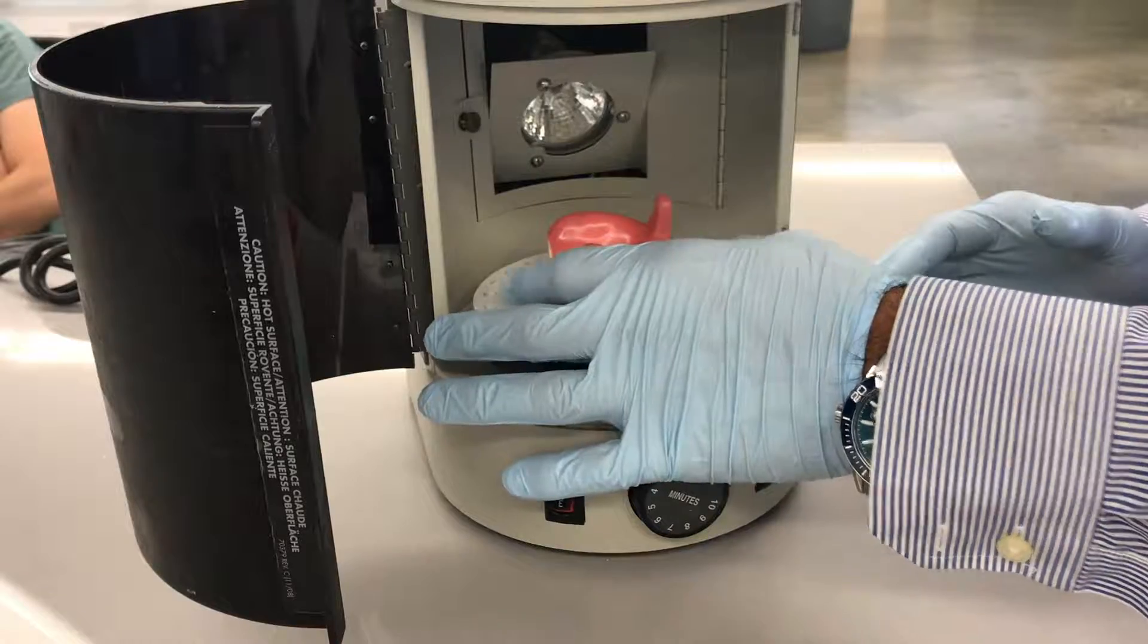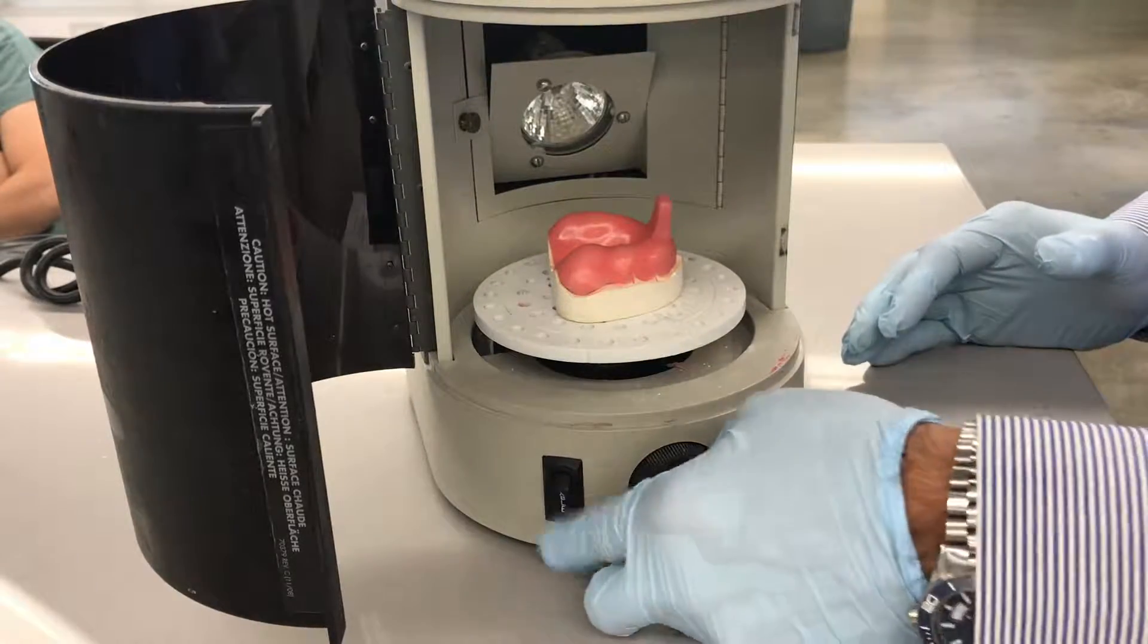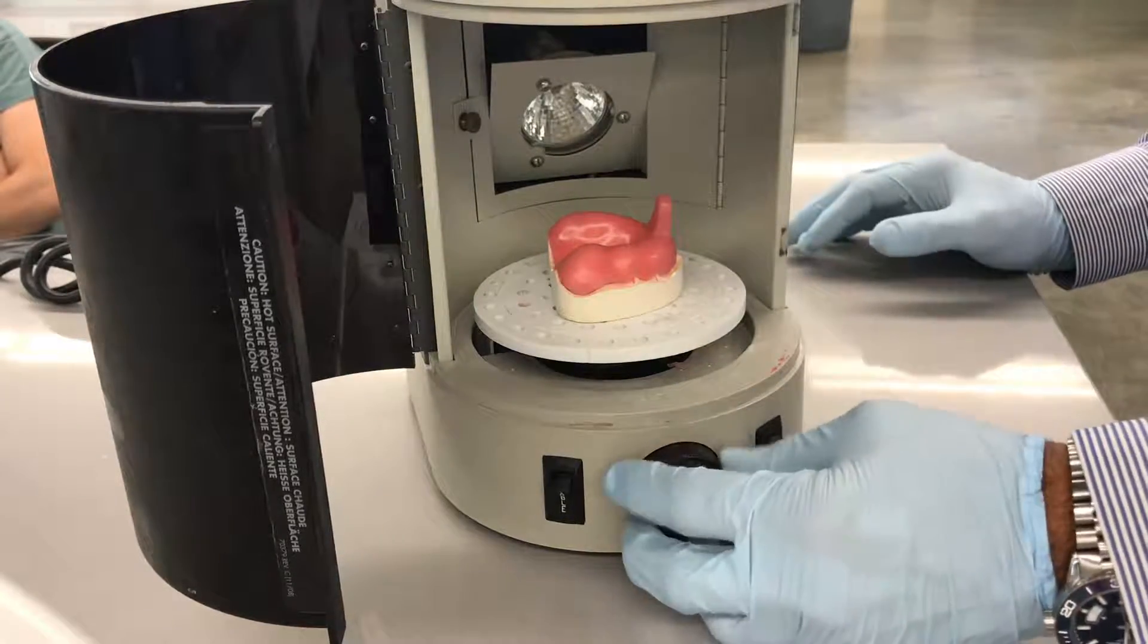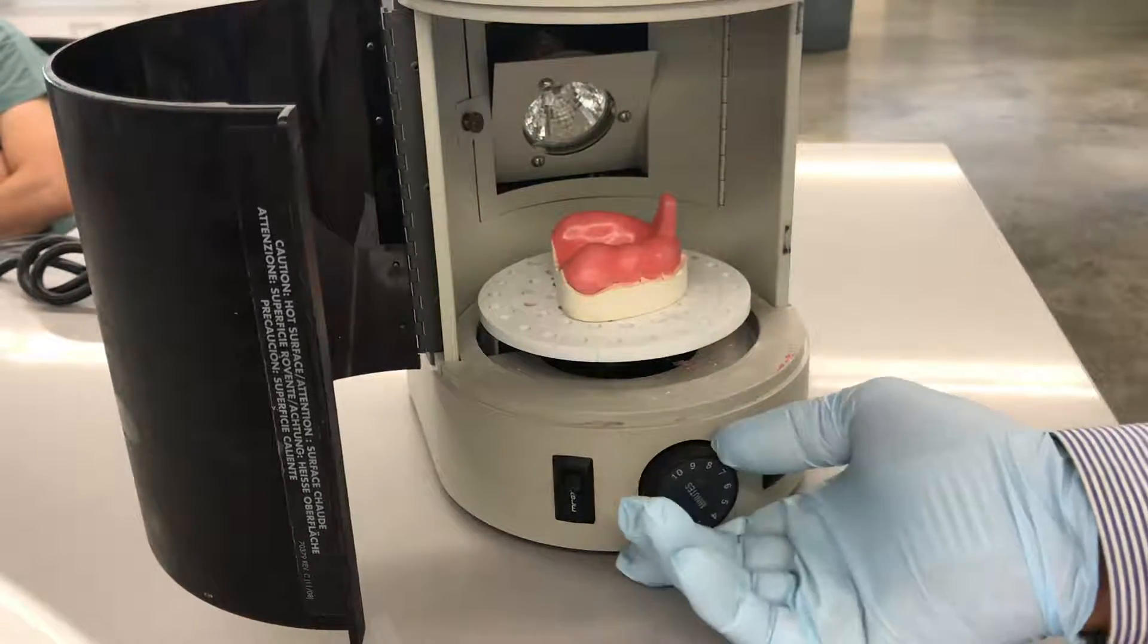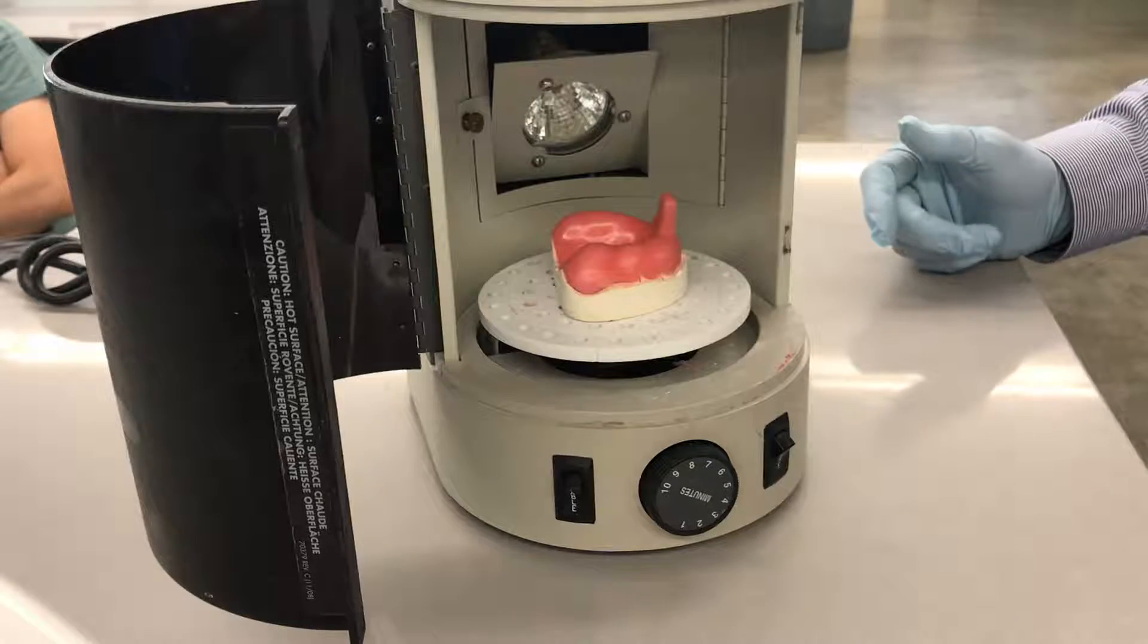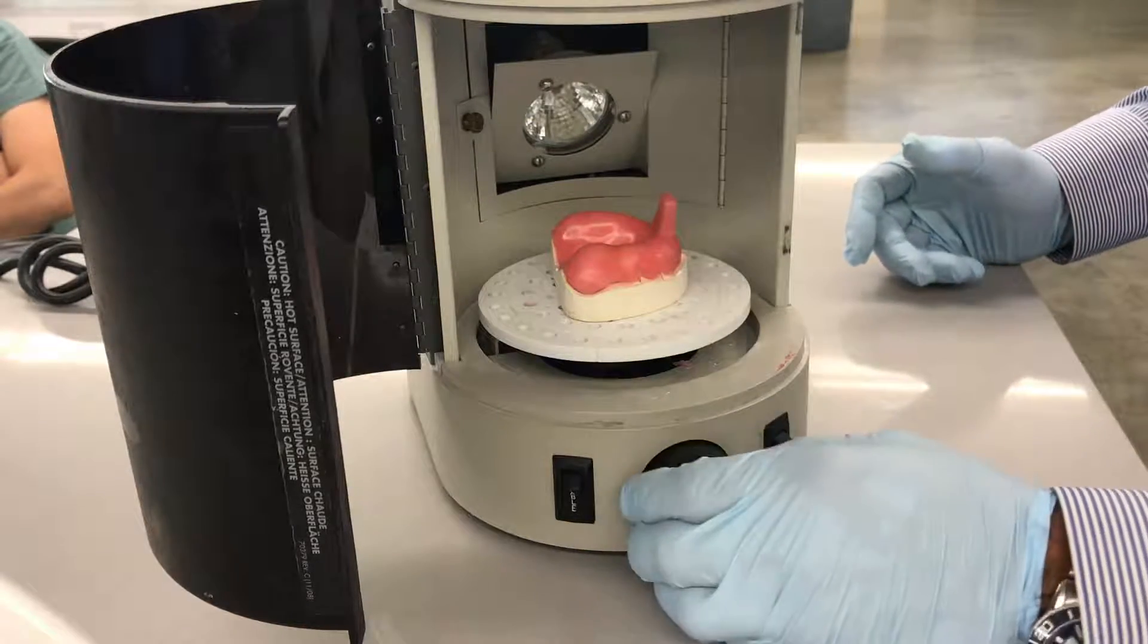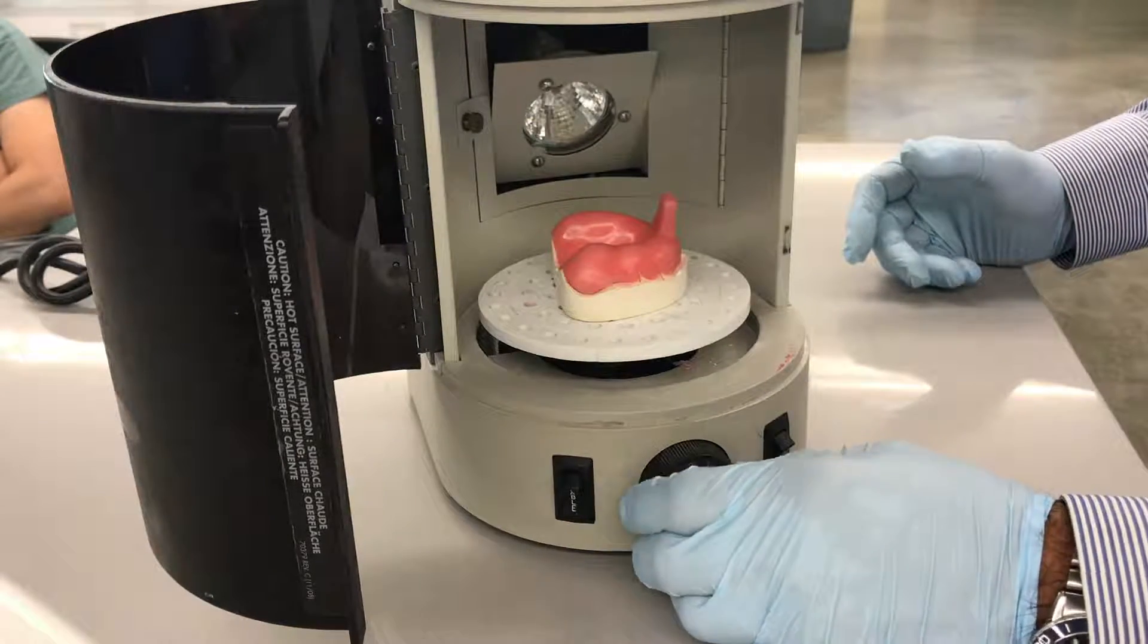So I'll start off with the upper. Make sure that everything is turned off. Your timer here, you have a knob to adjust the timer. You can go all the way up to 10, but for this particular material, we don't need to go all the way up to 10. I think two minutes is sufficient.